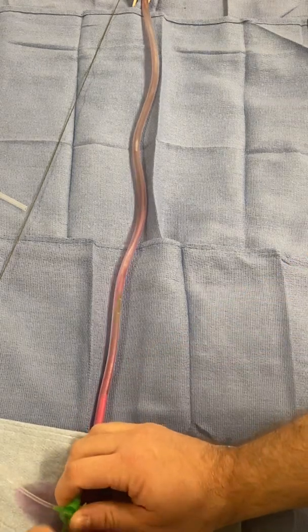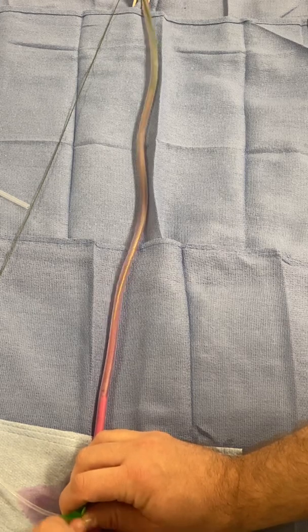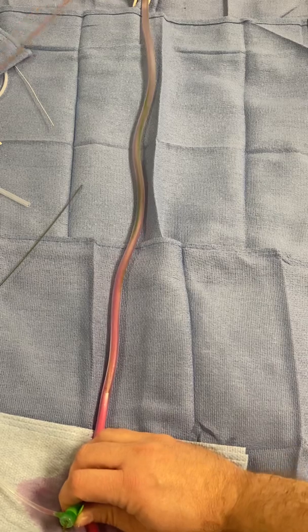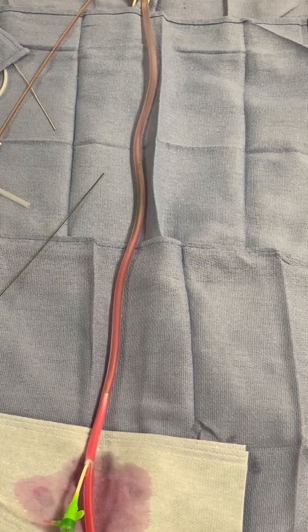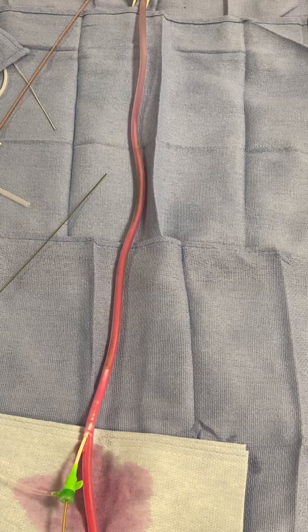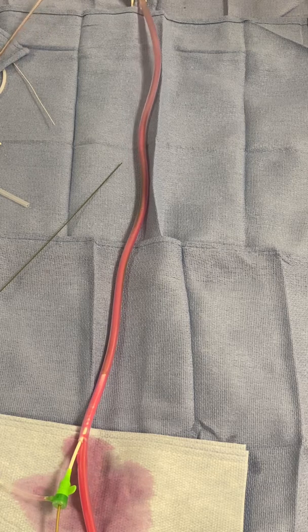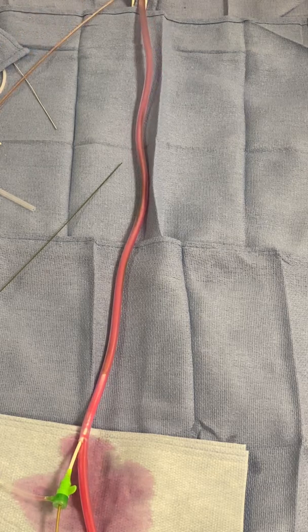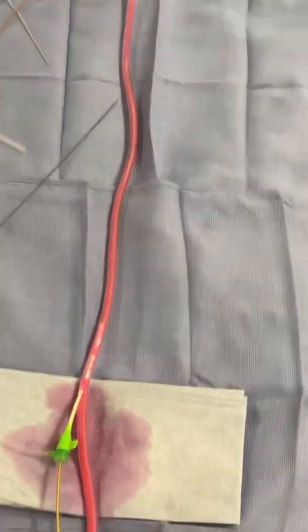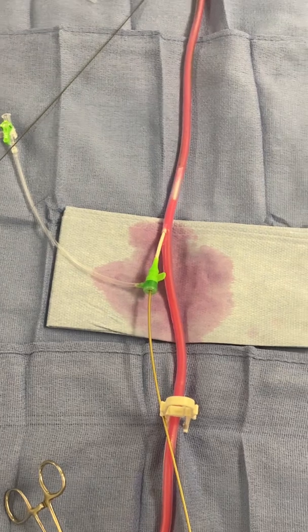This is going to keep blasting — eventually all the clot will disappear. I'll go as far as I can and come back. My clot is gone at this point. Hopefully I would have a return to blood flow. Before I had zero blood flow; now my line is starting to fill up — it's pink. I have good blood flow — if this was an RCA or some kind of peripheral vessel, I would have blood flow at this point.